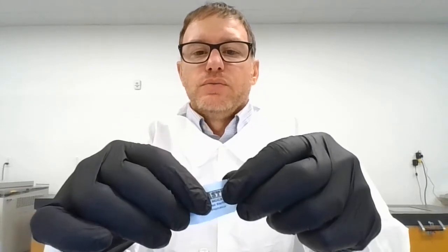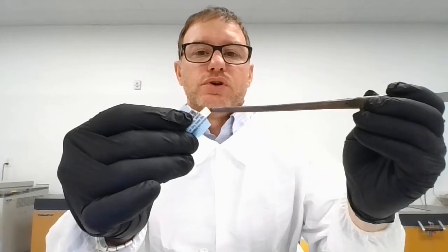We need our media, strip, and sterile forceps. We'll make a small tear on the glassine and then pull down and away at the same time to expose the strip. Down and away, we've exposed the strip. We'll use our sterile forceps to remove the strip from the glassine and transfer it into the media.